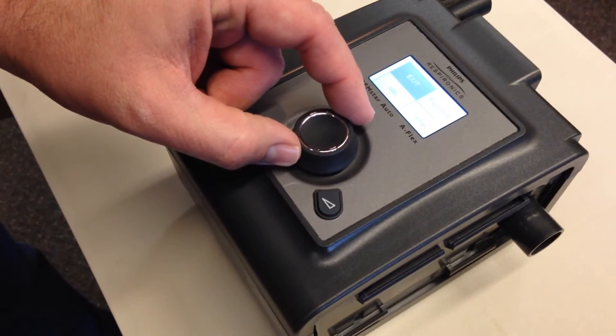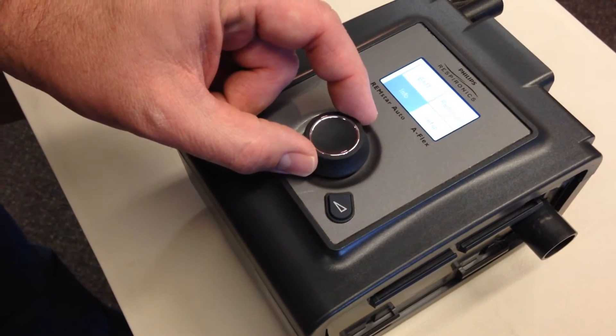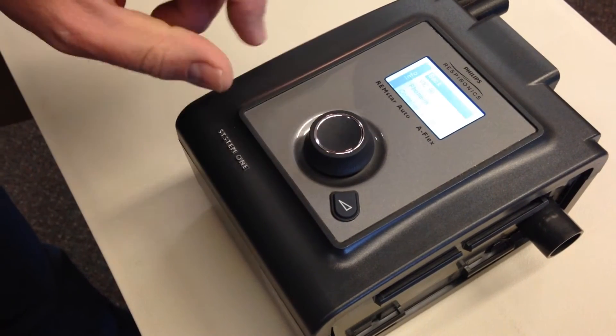Then use the select knob to go to the info tab and click the select button.